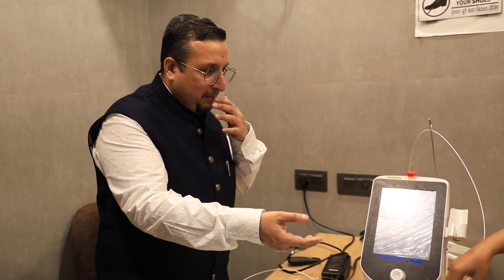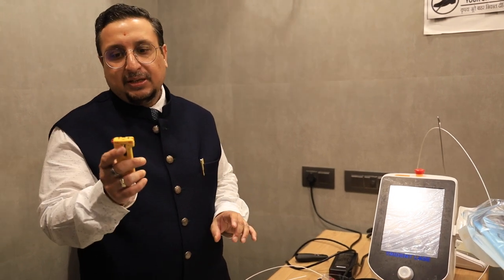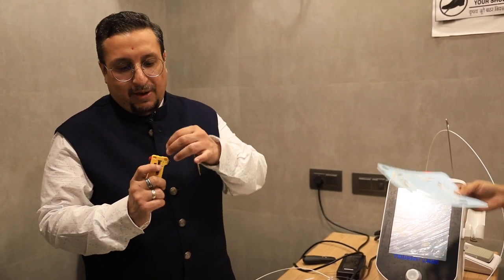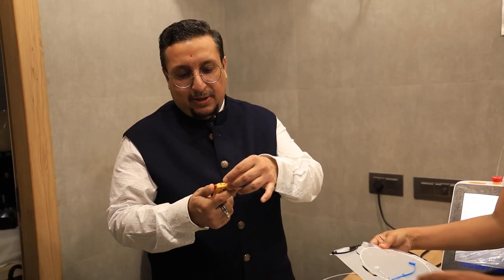This is the fiber and this is the cutter. Fiber is inserted inside this and we cut it.